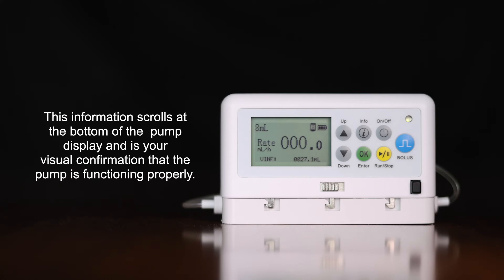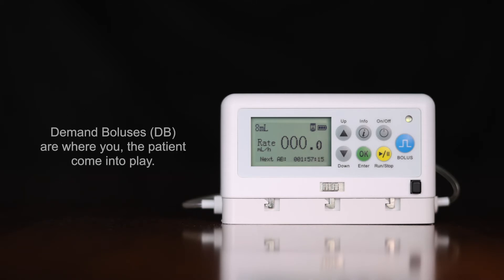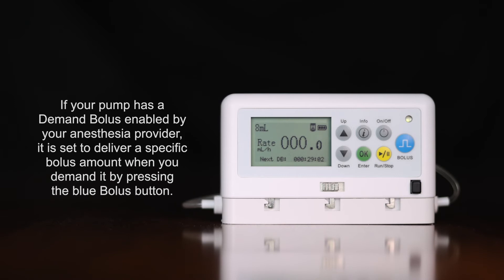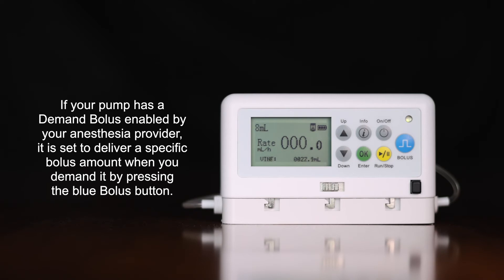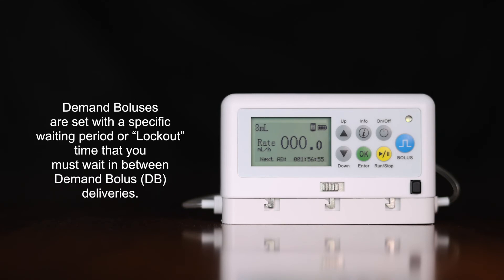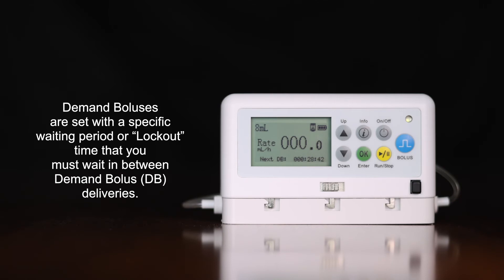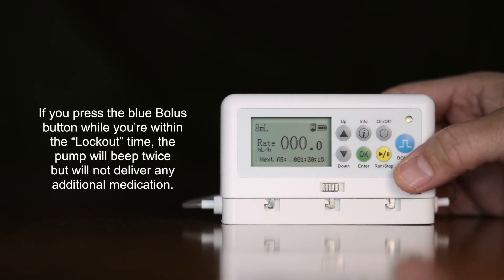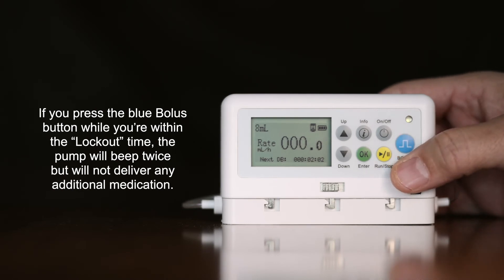When your next demand bolus is available, it is shown on your pump as 'Next DB.' This information scrolls at the bottom of the pump display every few seconds as your visual confirmation that the pump is functioning properly. Demand boluses (DB) are where you, the patient, come into play. If your pump has a demand bolus enabled by your anesthesia provider, it is set to deliver a specific bolus amount when you demand it by pressing the blue bolus button. Demand boluses are set with a specific waiting period or lockout time you must wait between deliveries. If you press the blue bolus button while within the lockout time, the pump will beep twice but will not deliver any additional medication.